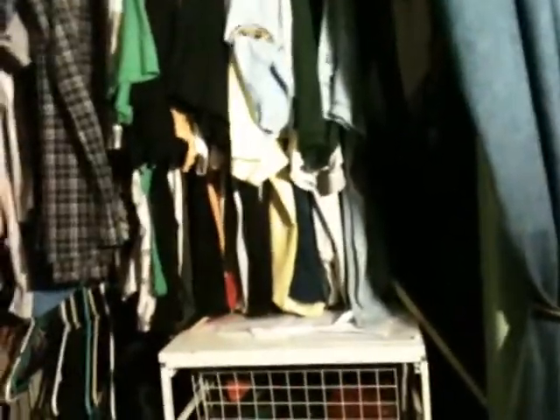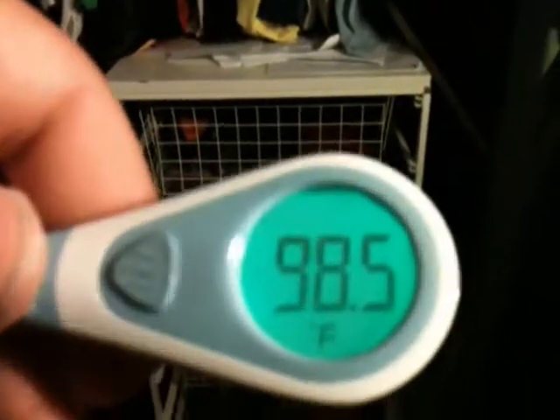I will now demonstrate my temperature via both methods. My oral temperature is 98.5, so it's pretty close to normal.